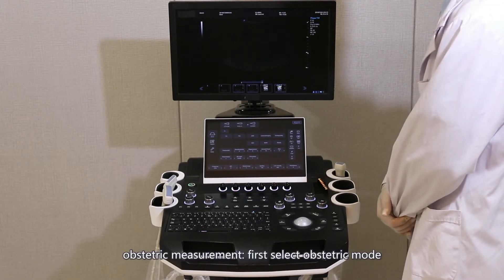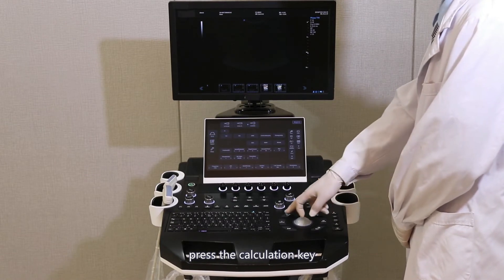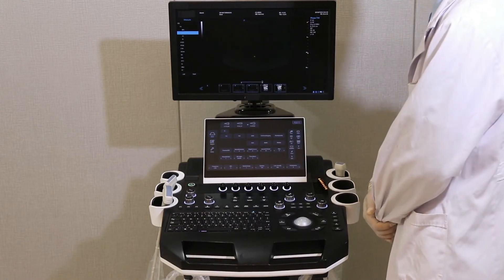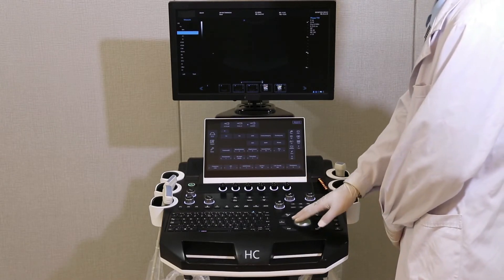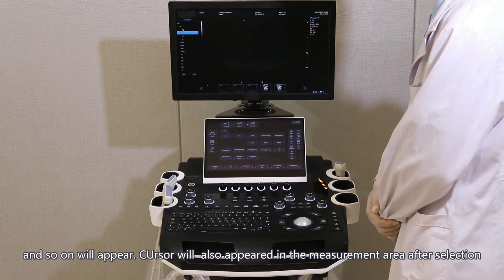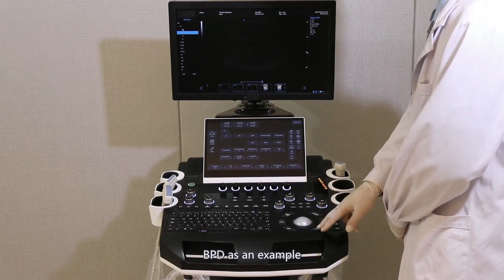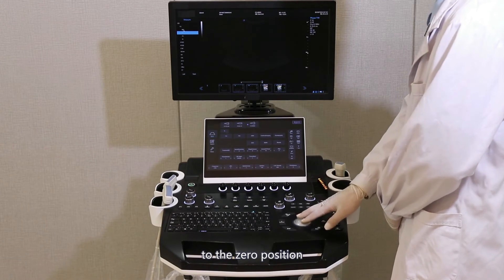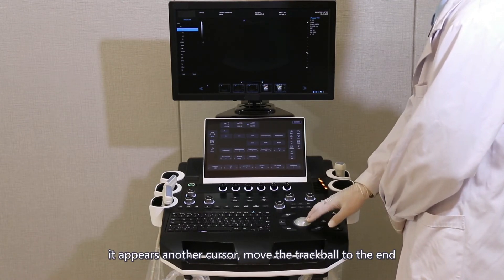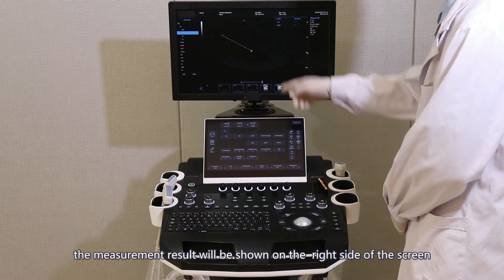Obstetric measurement: first, select the obstetric probe in the examination area. Press the Calculation key to display the measurement menu on the left side of the screen. Measurement options such as BPD, HC, AC, FL, and so on will appear; the cursor also appears in the measurement area after selection. Using BPD as an example: move the cursor to the zero position, press the Set button, then move the trackball to the end and press the Set button. The measurement result will be shown on the right side of the screen.